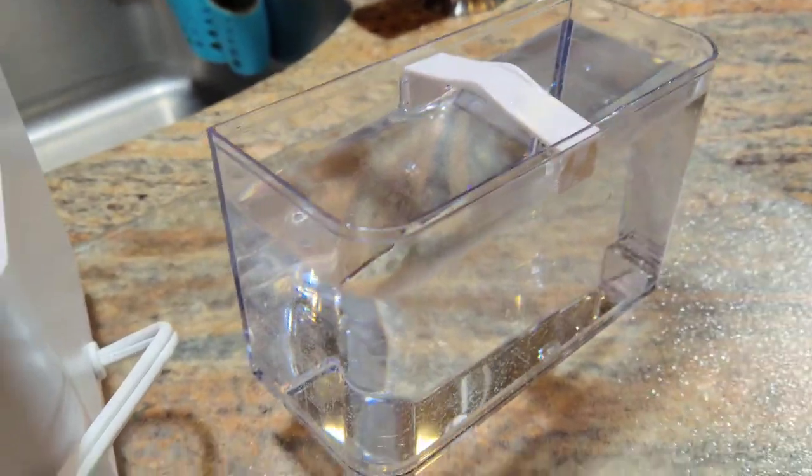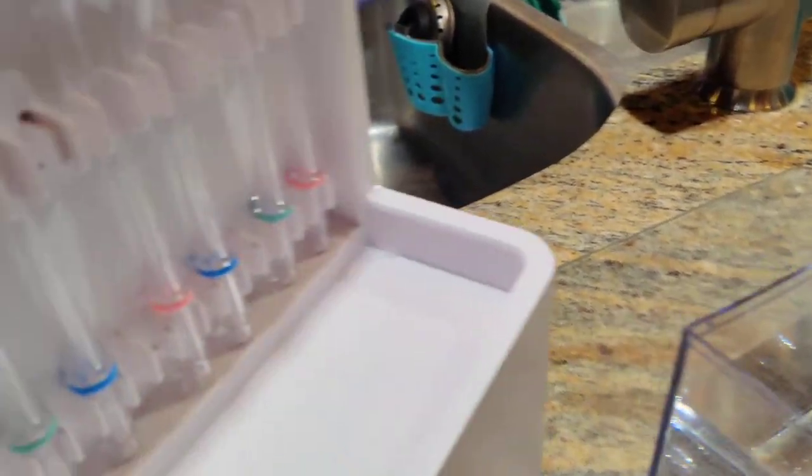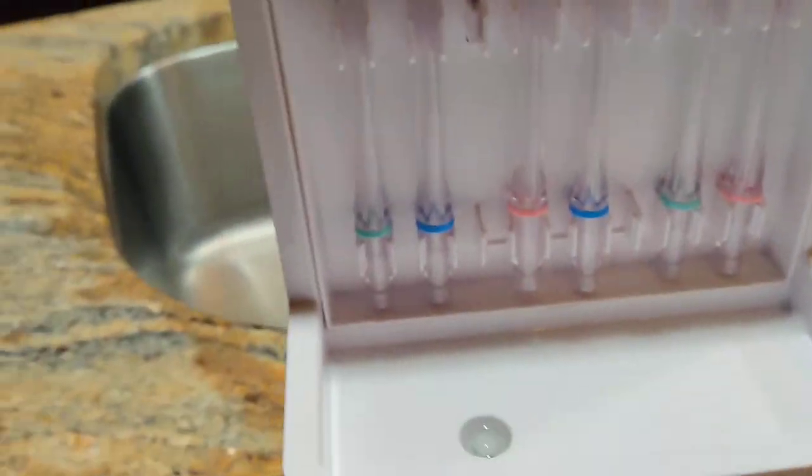This is a really nice dental flosser with a large capacity tank so it lasts longer before it runs out. The extra tools are stored behind the tank.